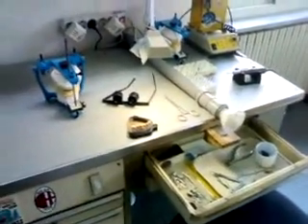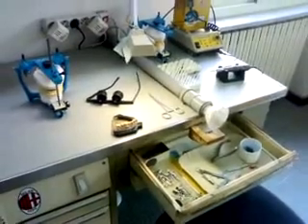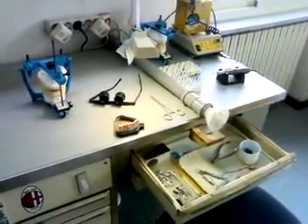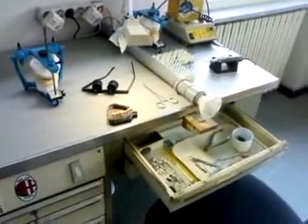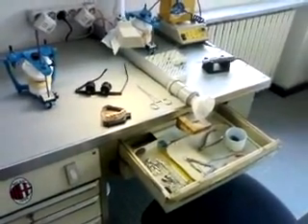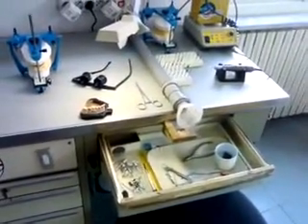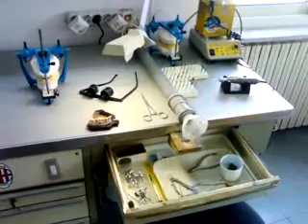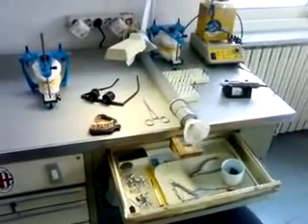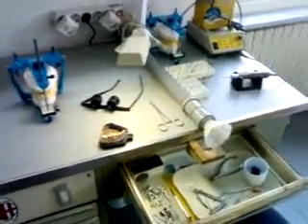Today I will be showing you what needs to be done to metal framework before applying opaque and after that ceramics. This phase of the work requires special attention because the surface of the metal has to be treated so it will be non-contaminating when it receives the layer of opaque in the oven and is fused to it.